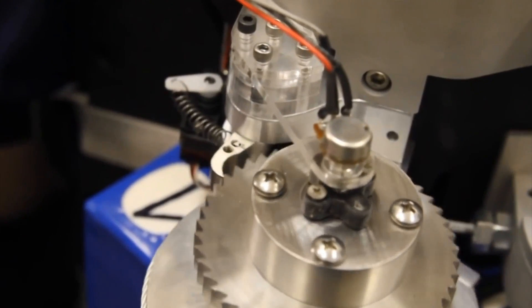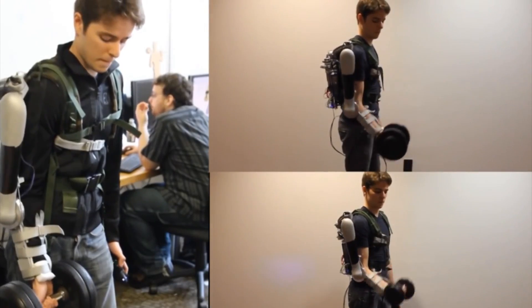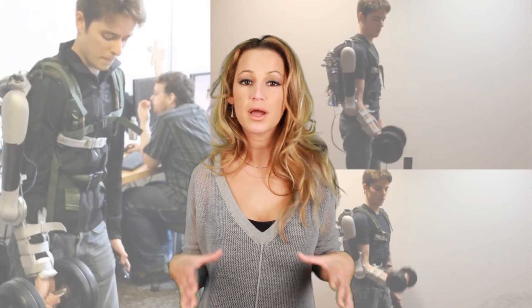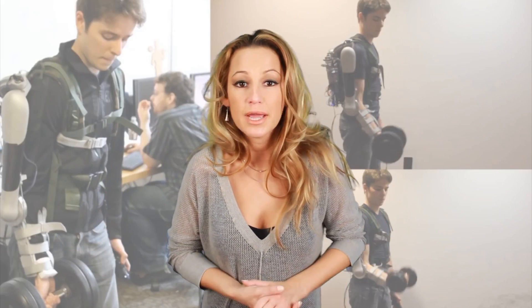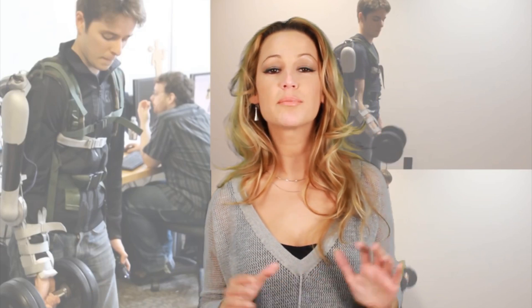Most of the components are made out of aluminum, and the cost of creating this arm is just about $2,000, and the device weighs 18 pounds. There are a ton of potential users. Grandparents who find it difficult to pick up their grandchildren can now pick them up with extreme ease. Experts say that the aging population is the perfect customer base for these exoskeletons.